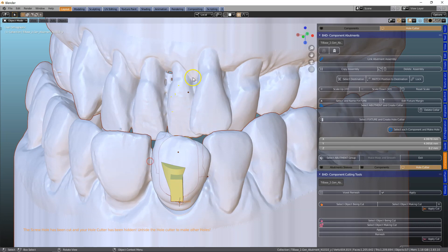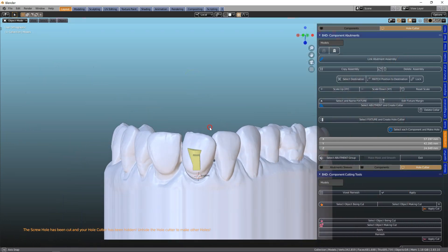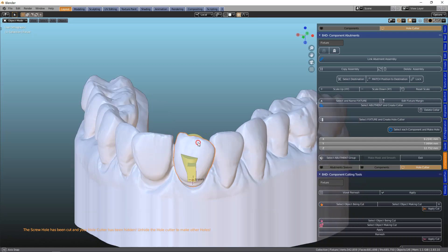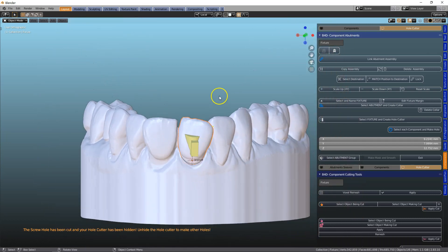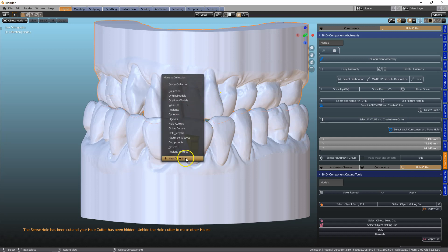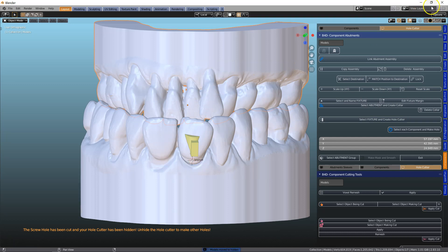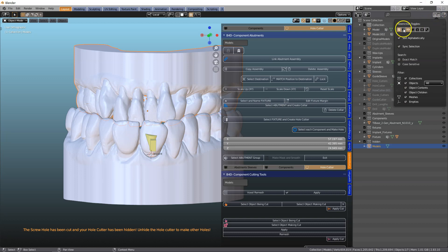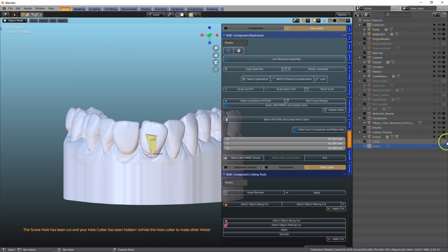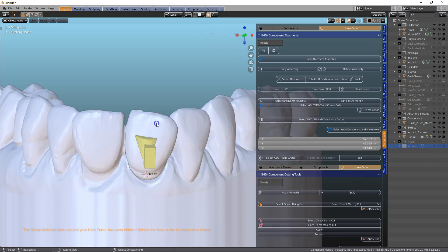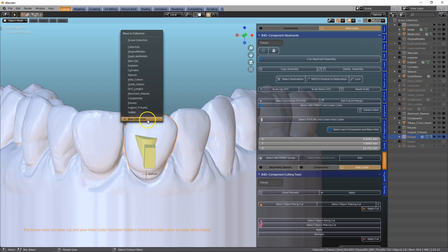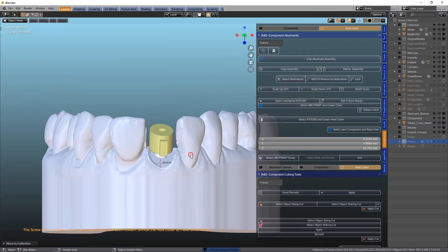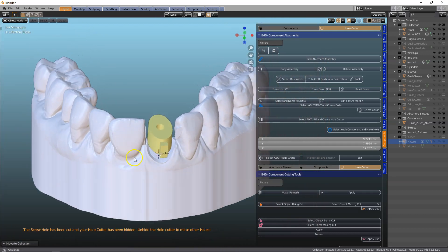Okay. Let's make a guide that goes through there. So that's looking good. So all of these components I can hide. Let's create a folder. Hidden. And we're going to throw all the stuff in there. It's just object management. This one looks a bit like a TV screen, so you just toggle that off and then you won't be able to see that anymore. So this one we're going to throw into the hidden as well.